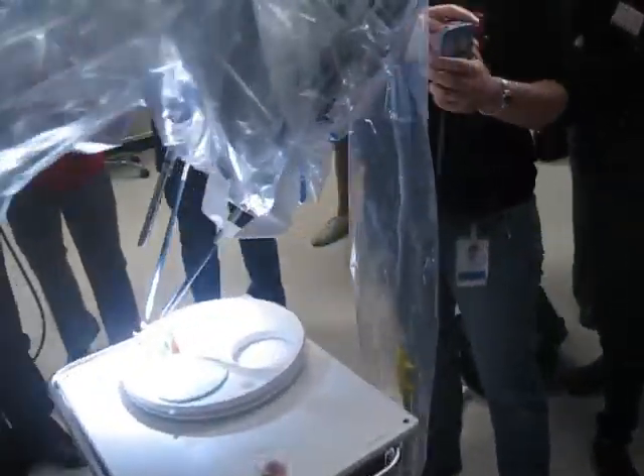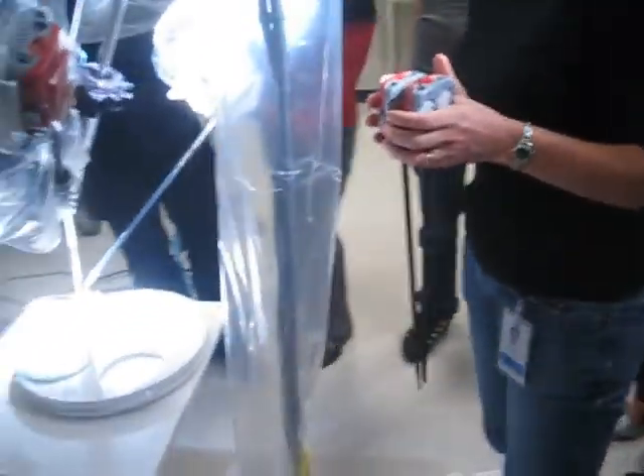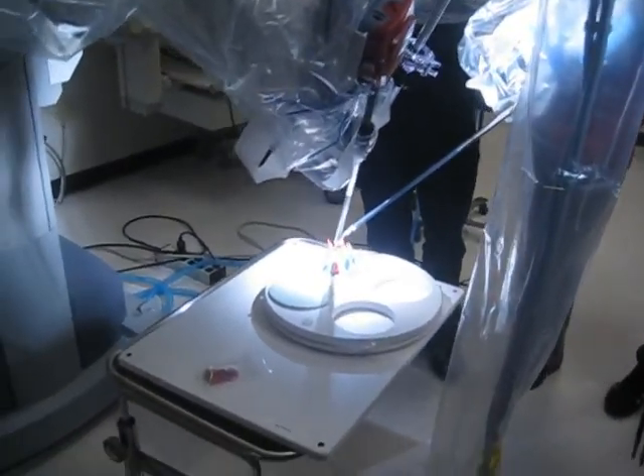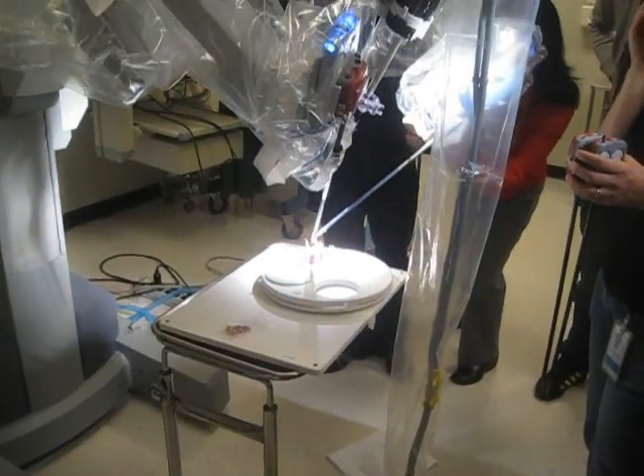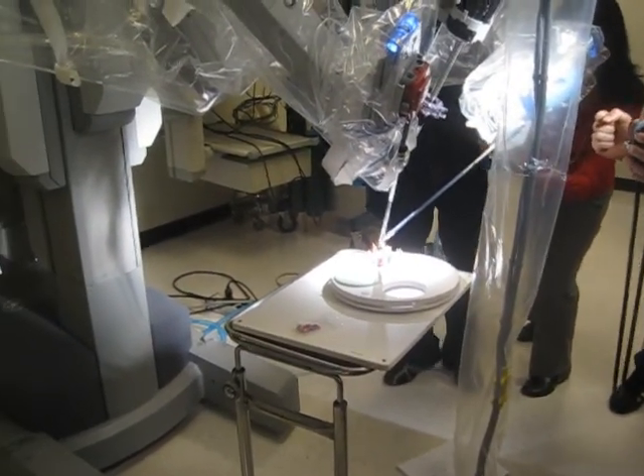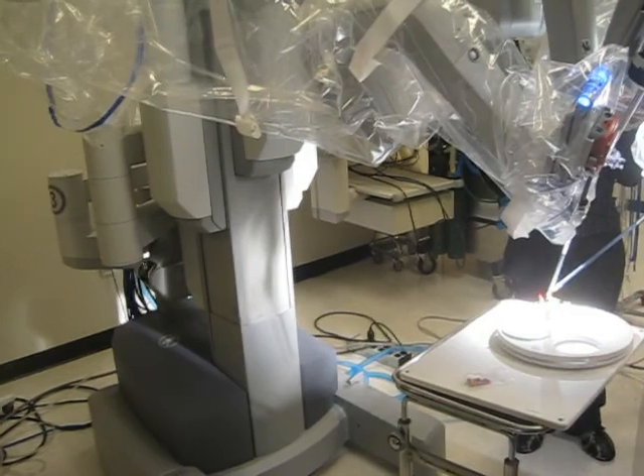Would you step on the pedal to your left that looks like a camera — it's got a picture of a camera. Left pedal. Now you've grabbed the image, so pull that image towards yourself.